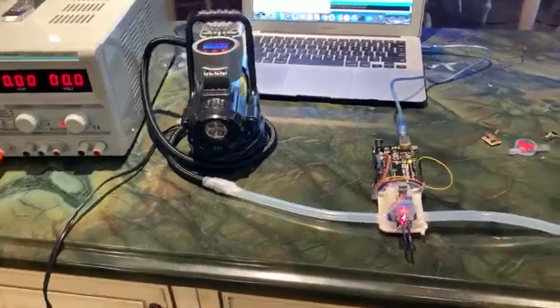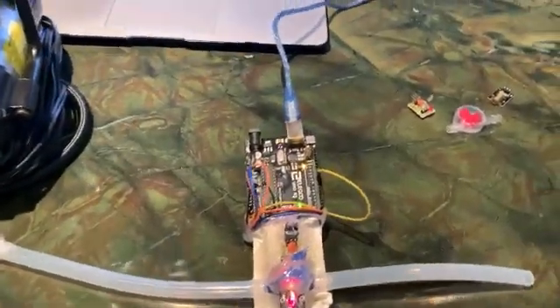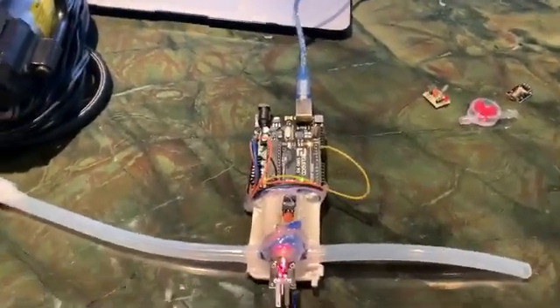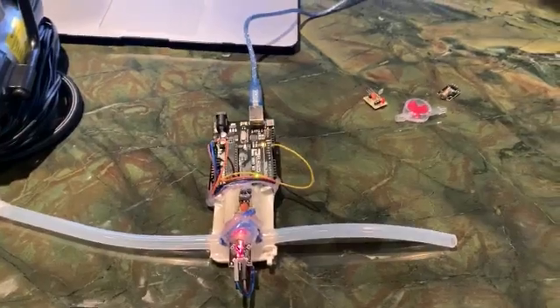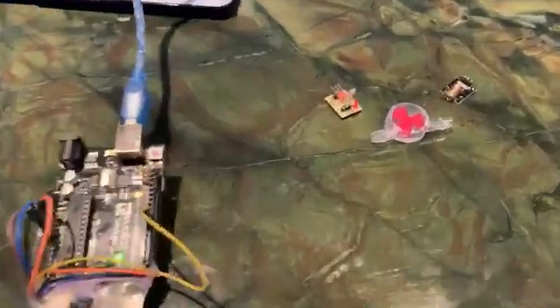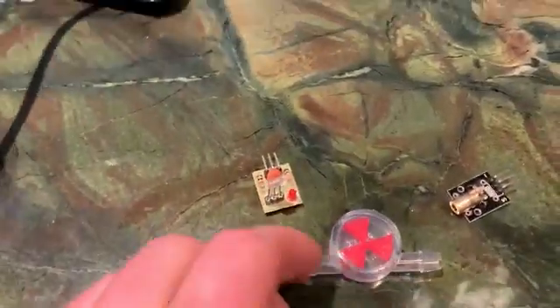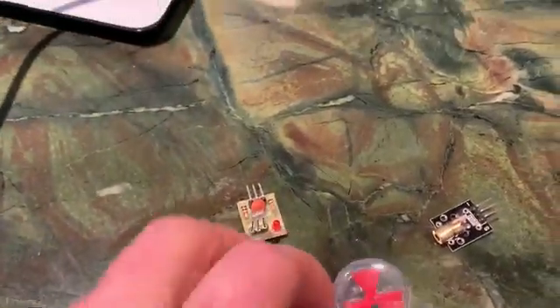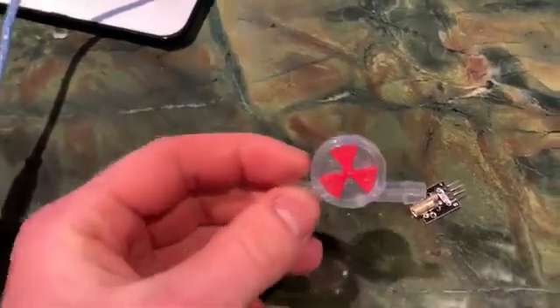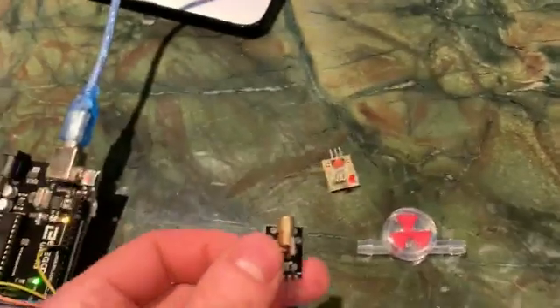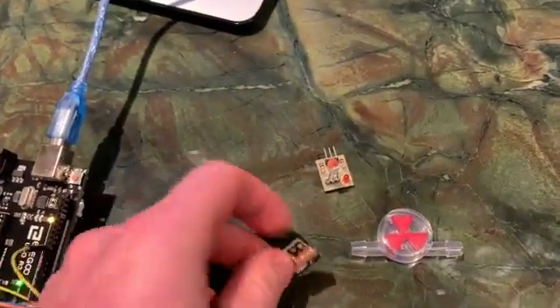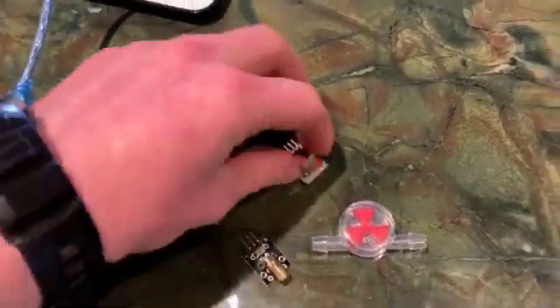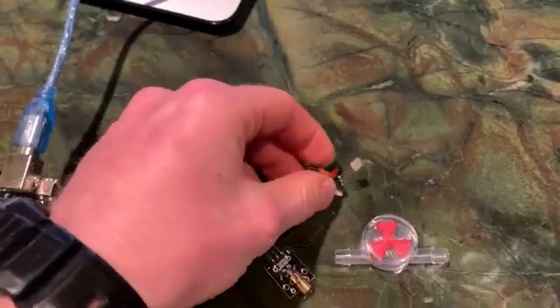Here is a simple flow meter that I have designed for a DIY respirator. It uses a pinwheel flow sensor that spins as air moves through it. An Arduino-based laser emitter and an Arduino-based laser receiver.